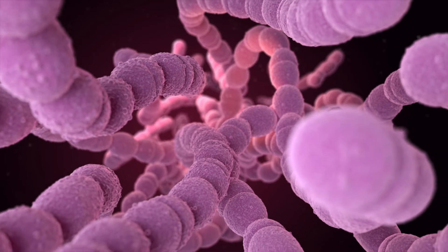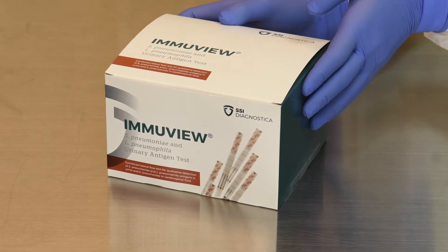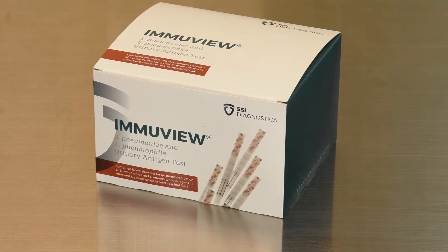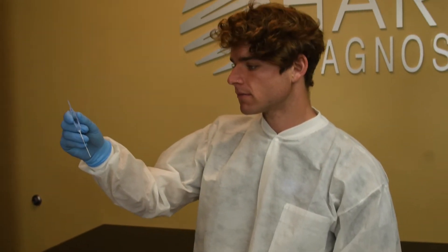In this short video, we will describe these bacteria, the diseases each cause, the similarities between two of them, and how the easy-to-use 2-in-1 ImmuView PNL immunoassay offers accurate and quick diagnosis.